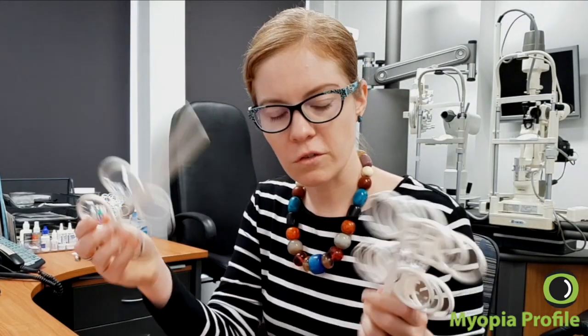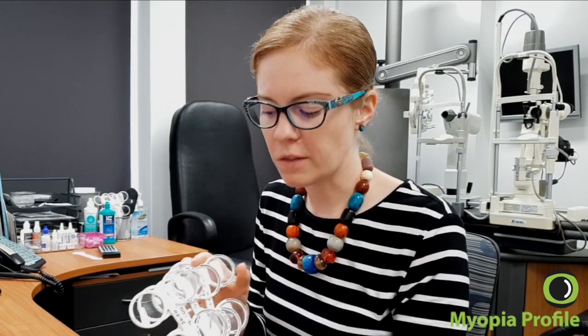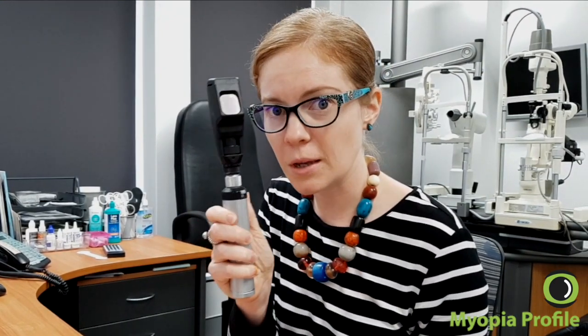If you get a greater lag, you've got stronger flippers you can use. I also use these flippers for my distance retinoscopy, starting with plus 1.50, because it's very easy to switch between the two. So give yourself some flippers and grab your trusty RET — which if you haven't picked up for a long time you should, because it's an amazingly useful tool — and you'll be measuring accommodative lag super quickly.